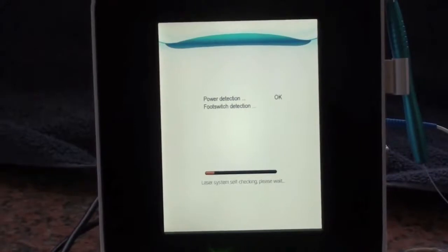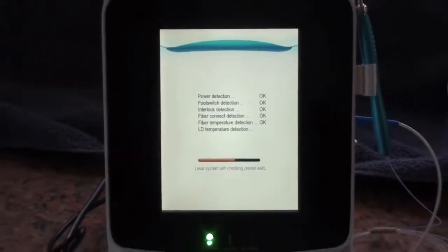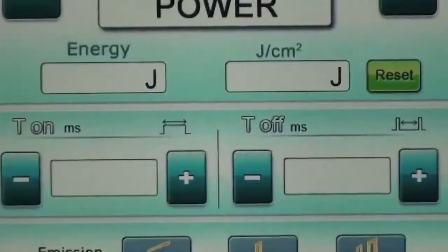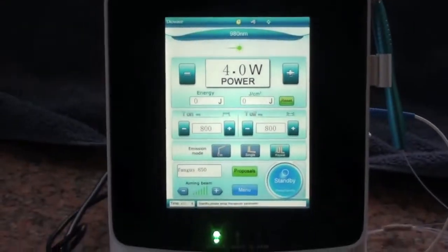It will go through a self-diagnostic screen. The power detection says okay, the foot switch detection, everything says okay. We're going through a full self-testing diagnostic feature.